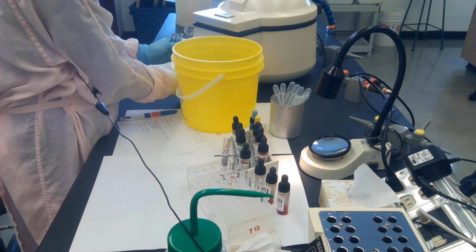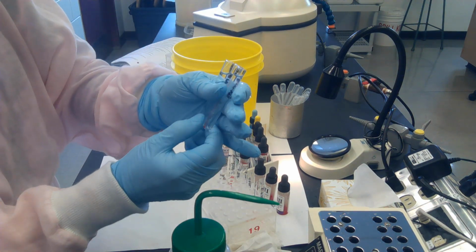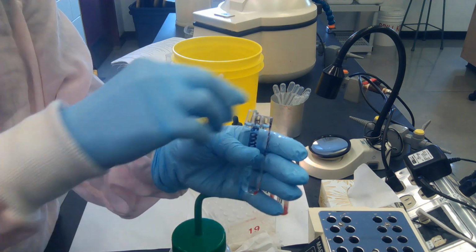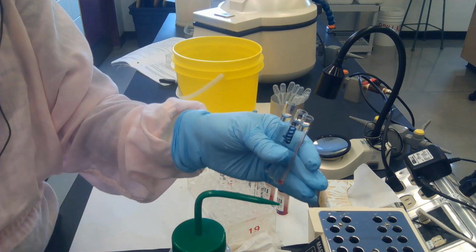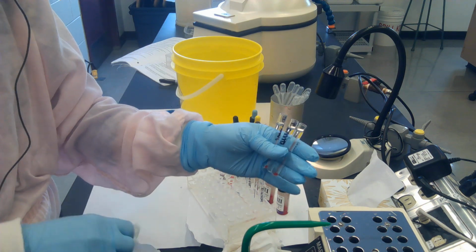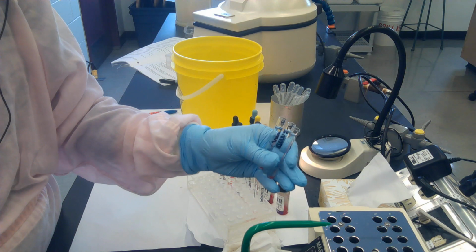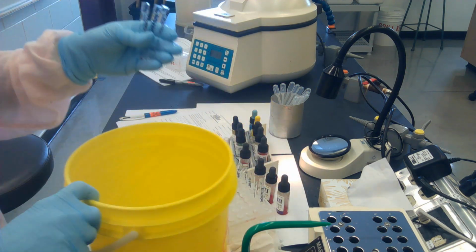So we're going to pretend this is our last wash. So I've got my tubes, I'm putting the button against my hand. I'm making sure that the tops of the tubes are separated. I'm going to dump, and often on a last wash, people will blot the tubes to make sure that they've gotten every last bit of saline out of there. So I've got my Kleenex ready, and I'm ready to dump and then blot.